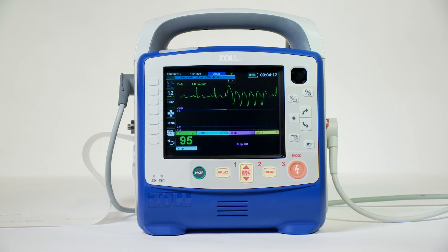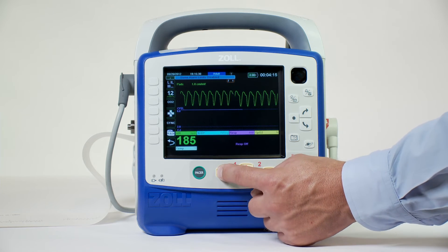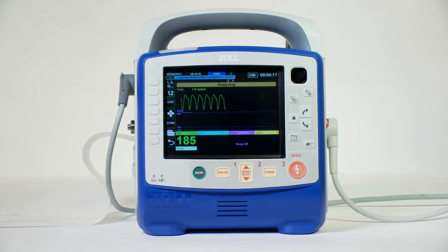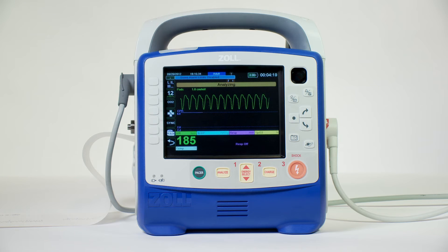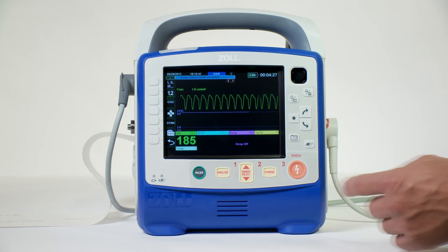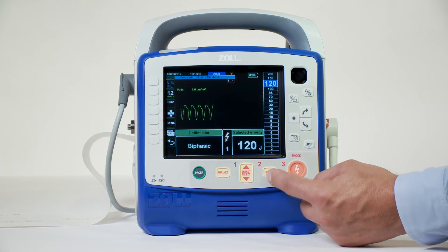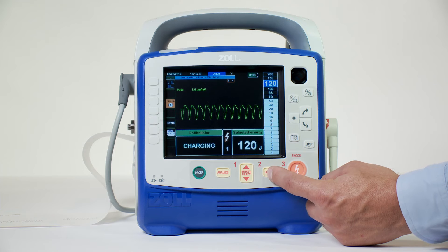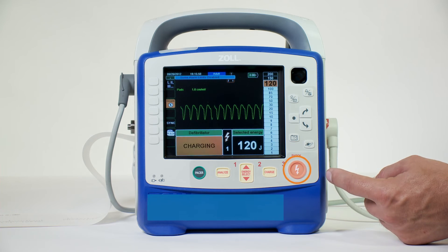Manual override quickly converts the device to a manual defibrillator with advisory. The advisory feature initiates an analysis of the patient's ECG rhythm and will also charge the defibrillator when configured, prompting the rescuer to shock by pressing the illuminated orange shock button.